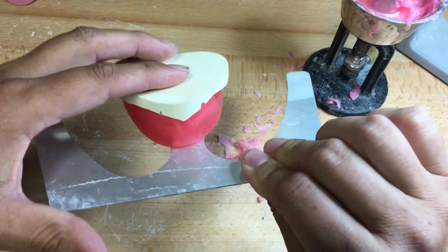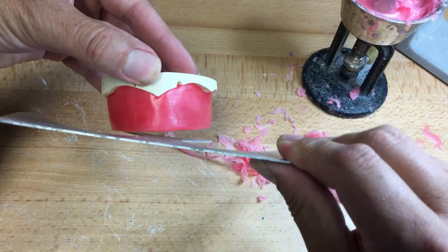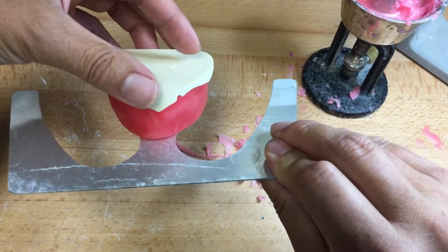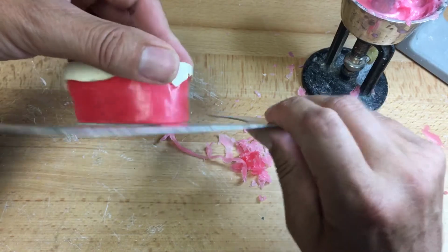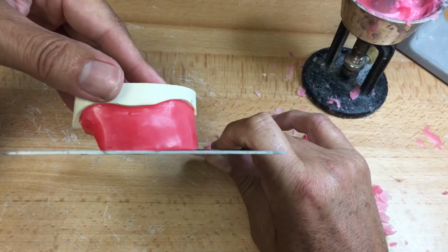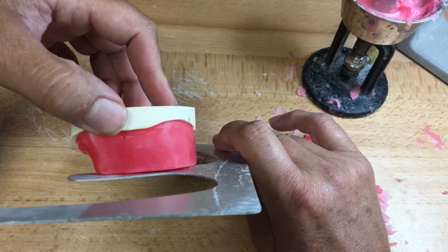you just simulate the patient's head here. This is the Fox plane to simulate the plane of occlusion, so we're not hanging down this way, or hanging down this way, or front, or back. The dentist will establish the occlusal plane. The occlusal plane will be most likely parallel to the ridge, parallel to the base of the model, parallel to Camper's plane, which is synonymous with the term ala-tragus line. Camper's plane, ala-tragus line.